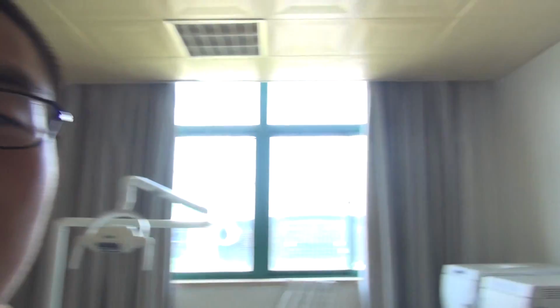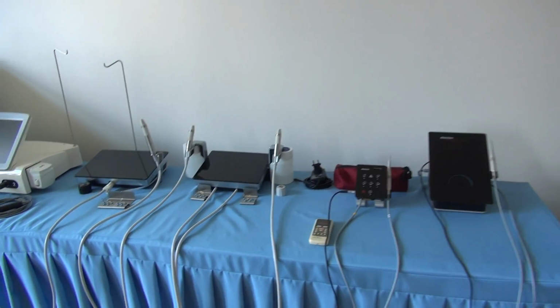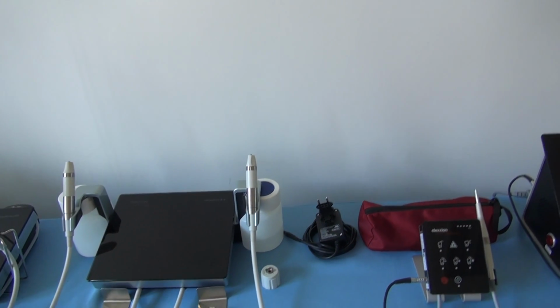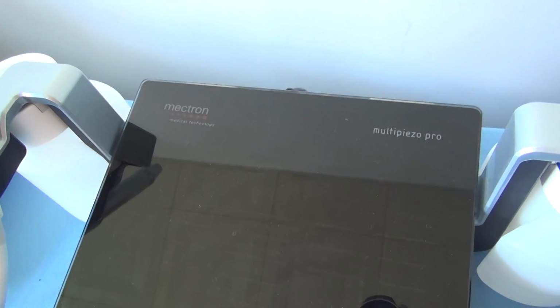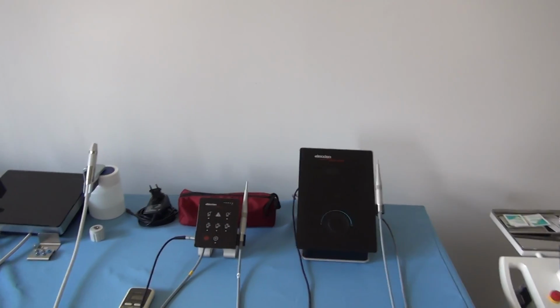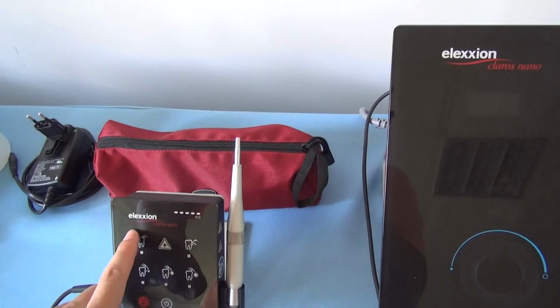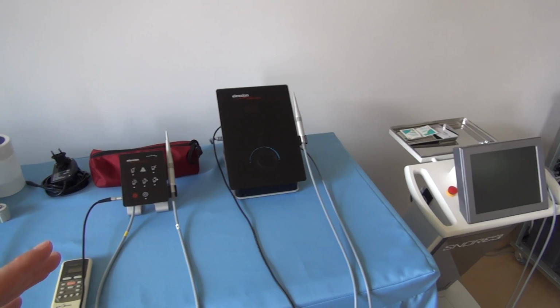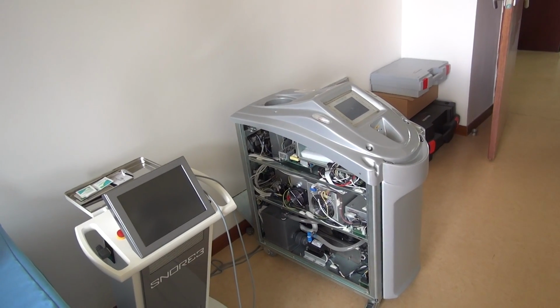I am now in the showroom of our company. You can find some very similar equipment to yours, because we are also the distributor of this brand in China and you are in Korea. And you can find the laser, our diode laser. It is much smaller than another kind of Er:YAG laser equipment. We also have it in our showroom, in our company.